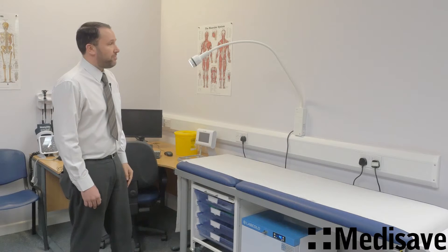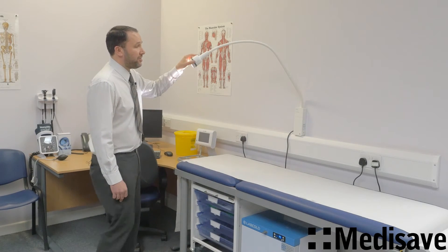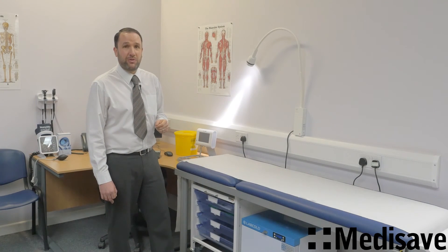It's a really nice model. These are very economical to run as well — being LED, you never have to replace a bulb. We're really impressed with this product. It's available from stock and we can supply on next day delivery. Any questions, give us a call on 01305 784 447.